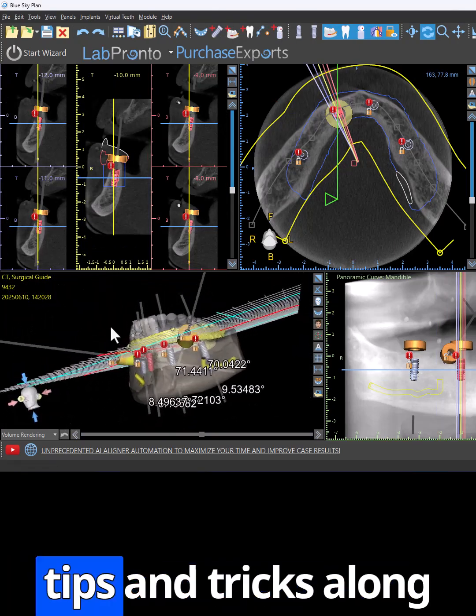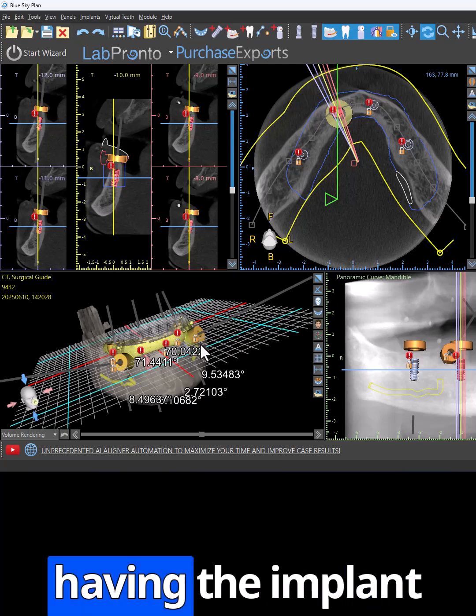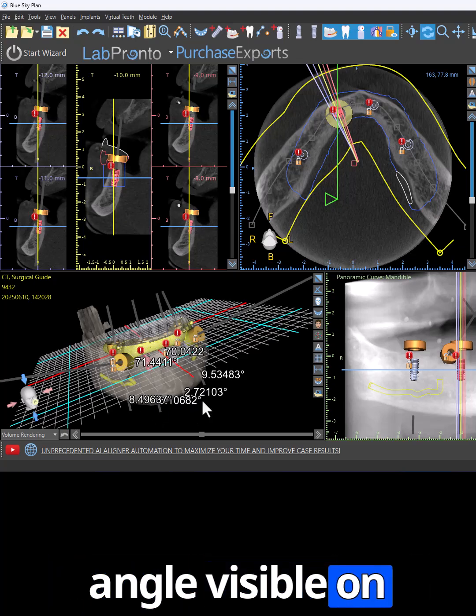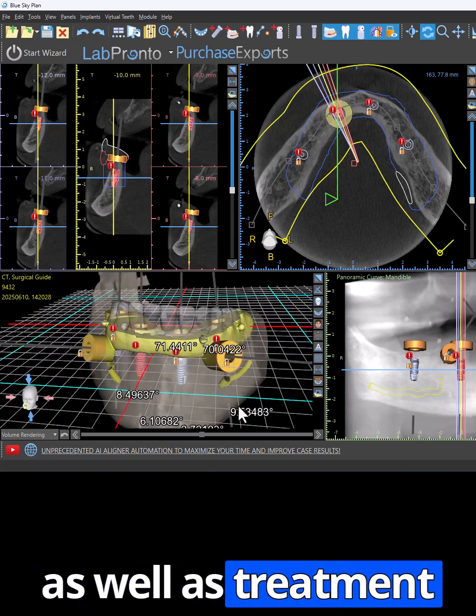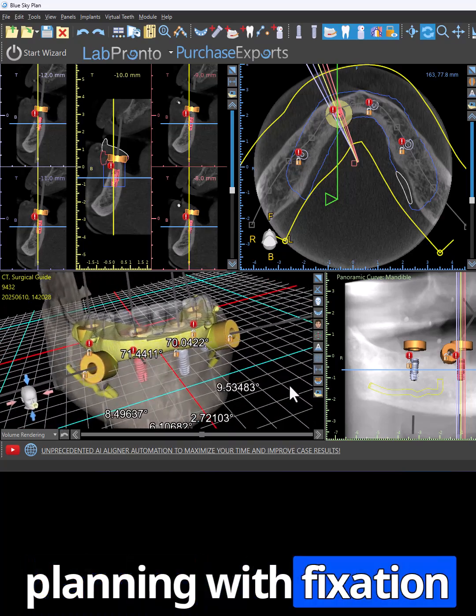We'll also cover some tips and tricks along the way, such as having the implant angle visible appear on screen, making sure the implants are parallel to each other, as well as treatment planning with fixation pins.